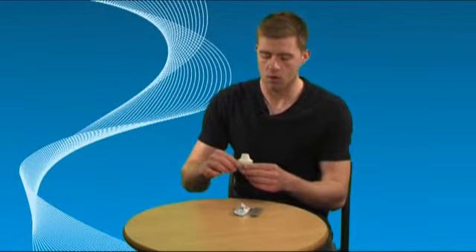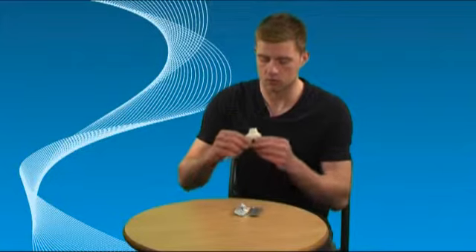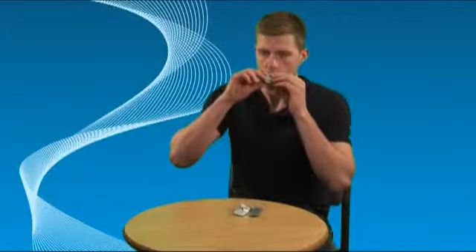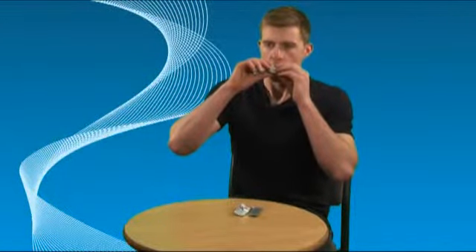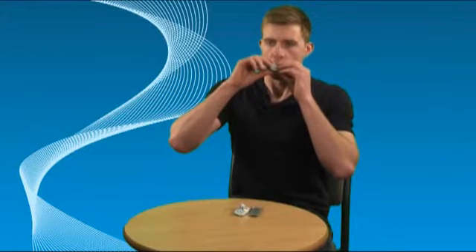To inhale the medicine, breathe out completely. Be careful not to breathe out into the inhaler. Close your lips tightly around the mouthpiece, keeping your head upright. Breathe in slowly and deeply. When you are breathing correctly, you will hear the capsule vibrate.